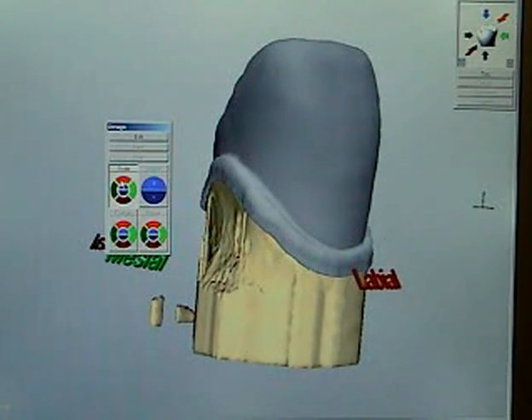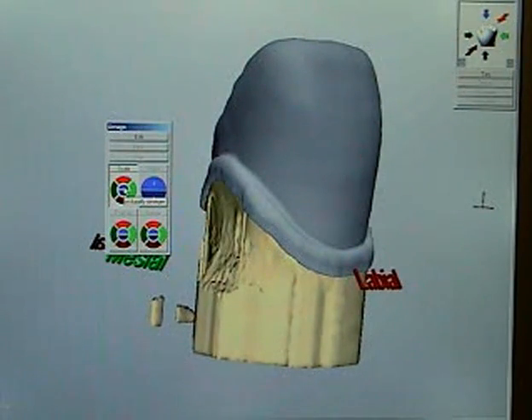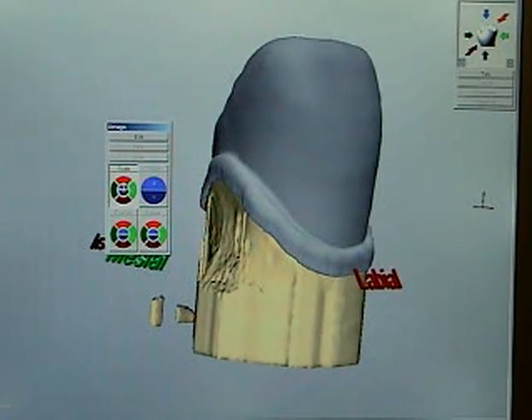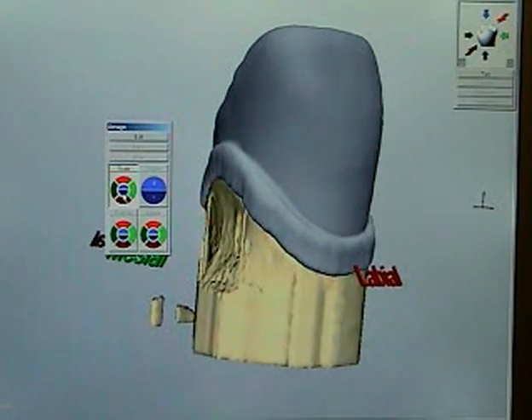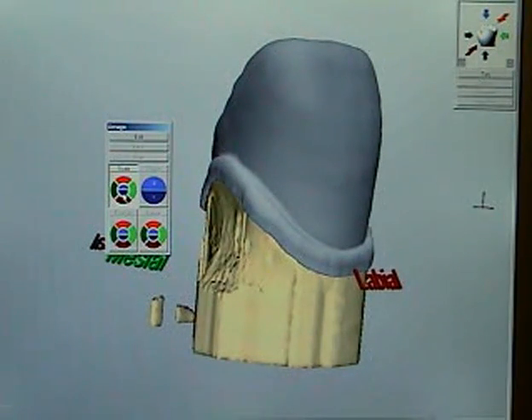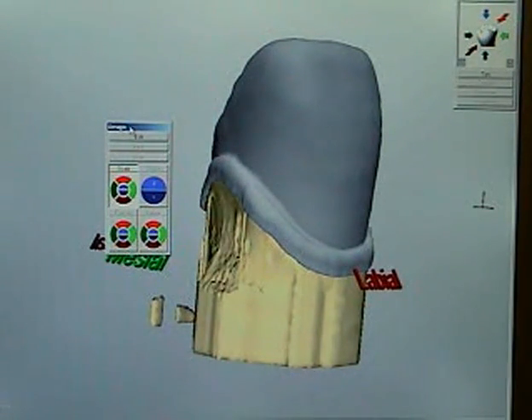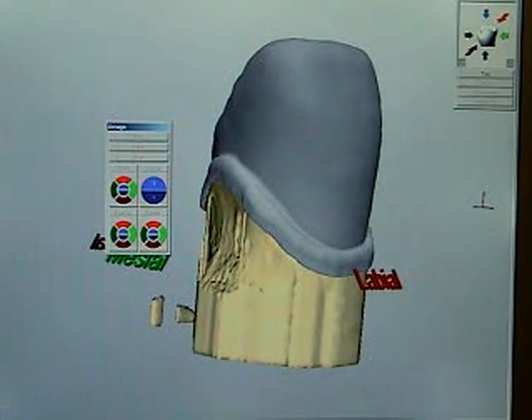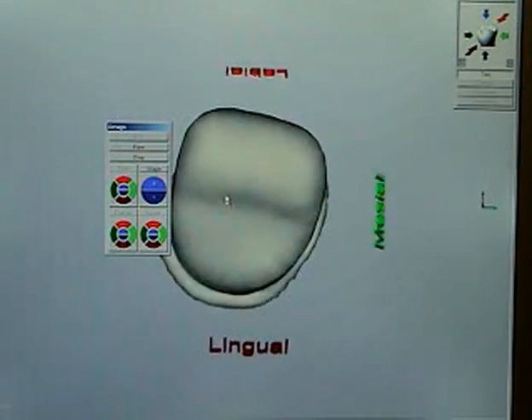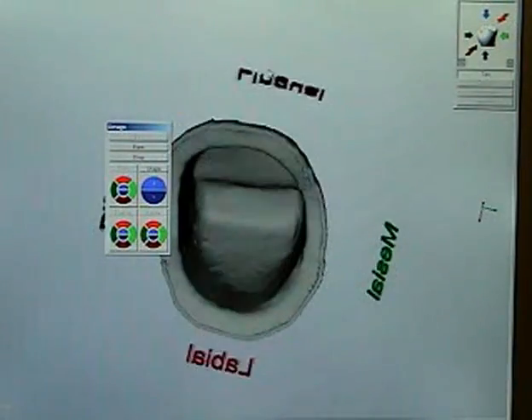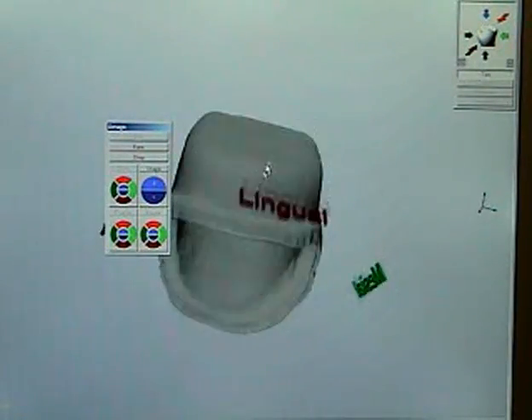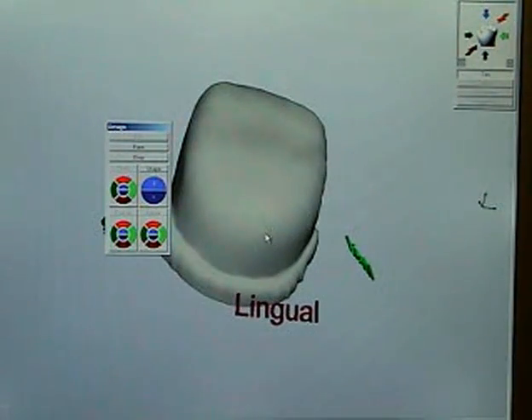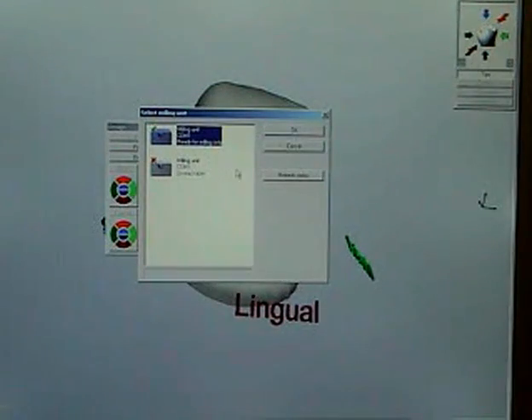This edit that we're doing now is just altering the thickness of the walls of the coping or you can see there the occlusal thickness as well and they can be adjusted anywhere between a millimetre and down to 0.3 of a millimetre. It's worth pointing out at the beginning of the process we did specify a thickness for the coping and that's half a millimetre thick and it actually ends up about 0.7 millimetres thick on the tip of the coping, doesn't it? And it's very uniform.